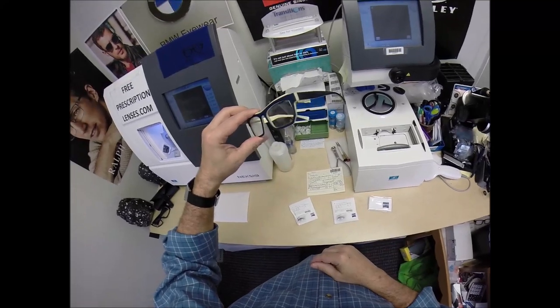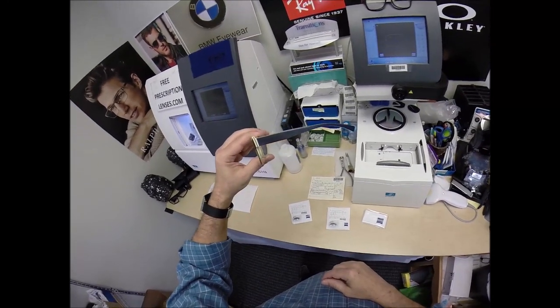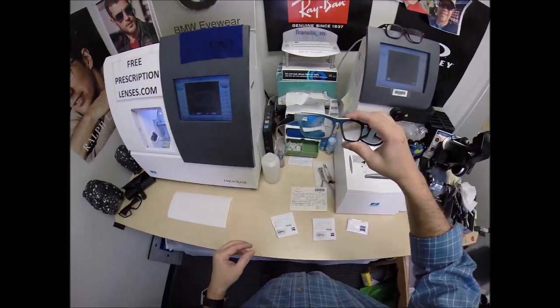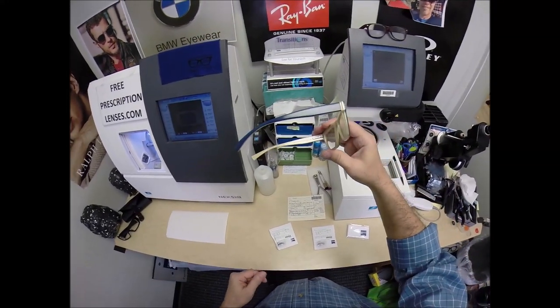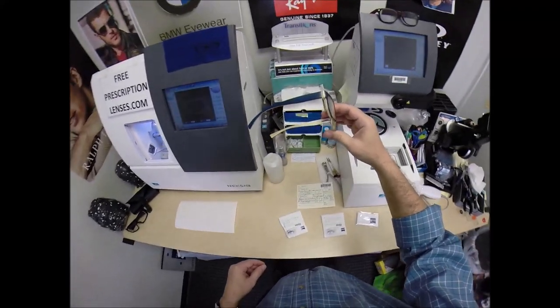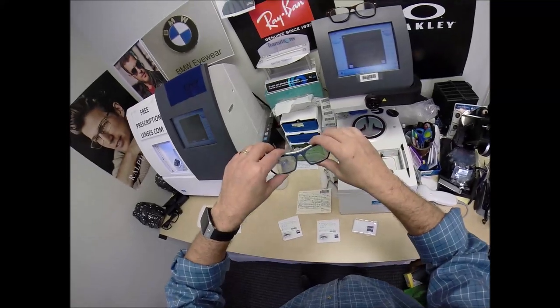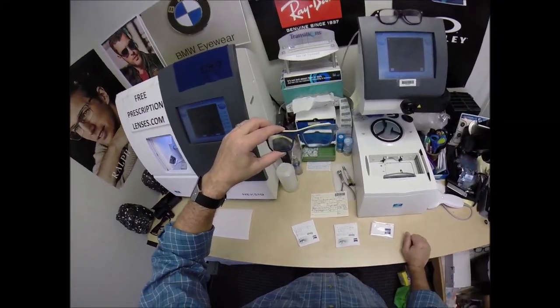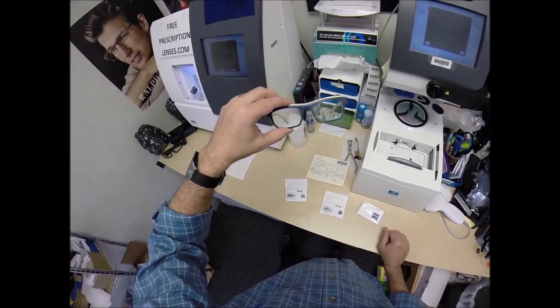This is color 945. This is the first time in all of my videos — I've done almost a thousand videos — that I've cut any buffalo horn. So you want to see an old pro look nervous? This is what it's going to look like. I'm going to have to be extra careful. This is a scary one, but there's always a first time for everything.